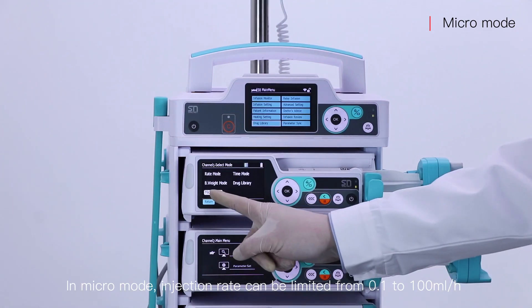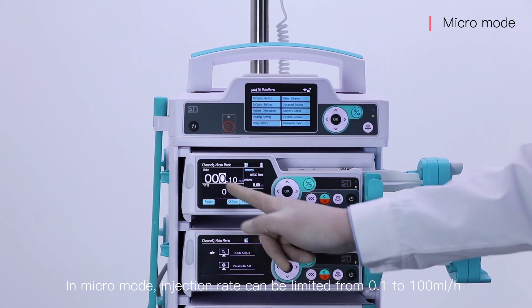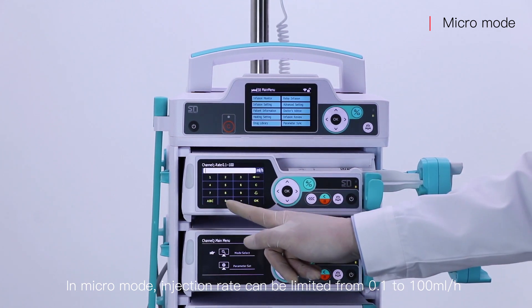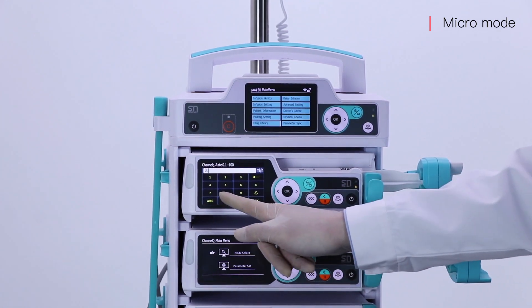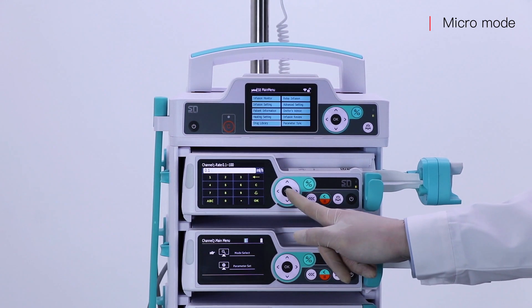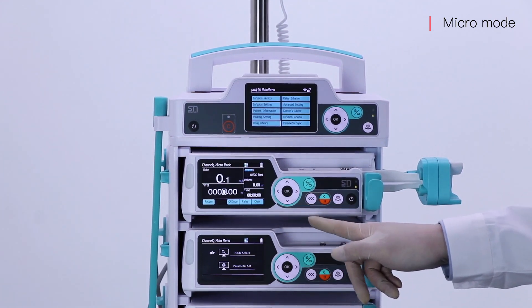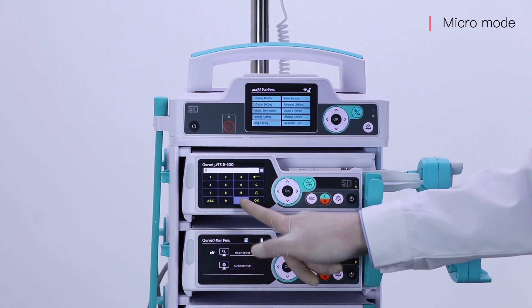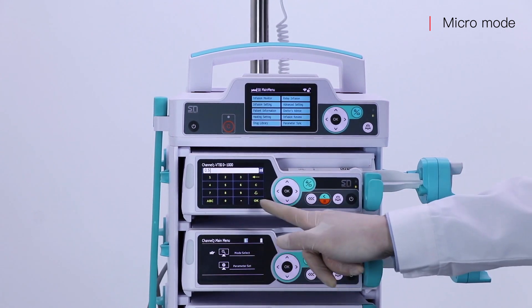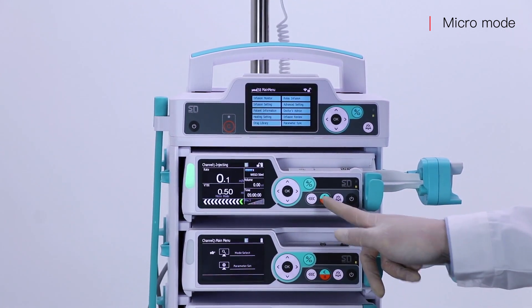In micro mode, the injection rate can be limited from 0.1 to 100 mL per hour.